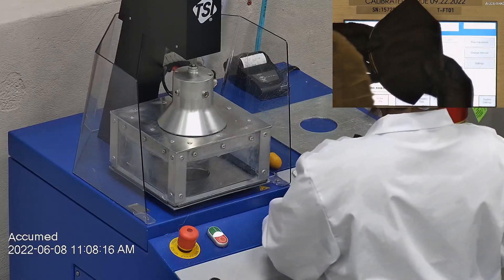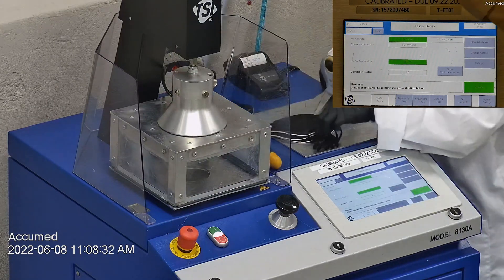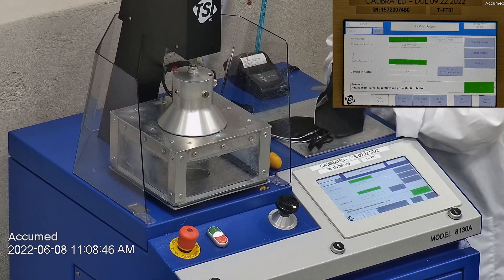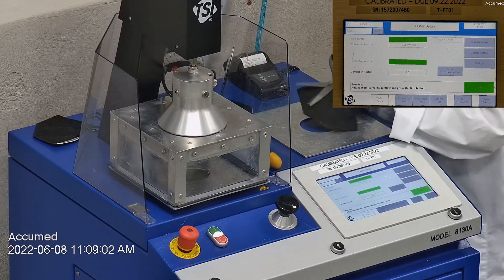With that being said, let's go ahead and see how these test on our TSI machine. We're going to be testing both the filtration efficiency and the pressure drop. This is our TSI machine model 8130A, which is also the same filtration testing machine that NIOSH uses to approve N95 respirators. Our procedure is inspired by NIOSH — we first run a tester setup and start removing the ear loop bands from the mask before placing it onto a testing plate to ensure a proper seal.